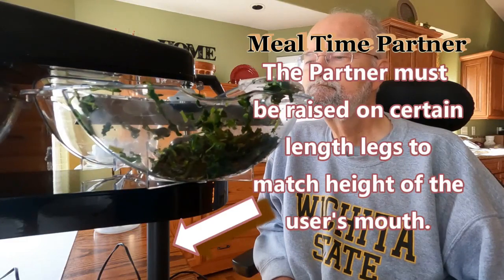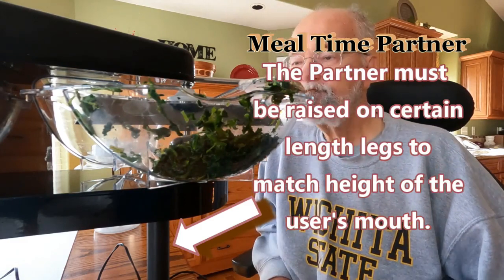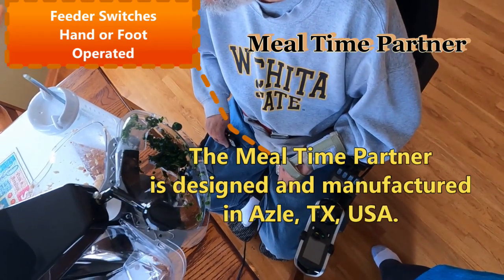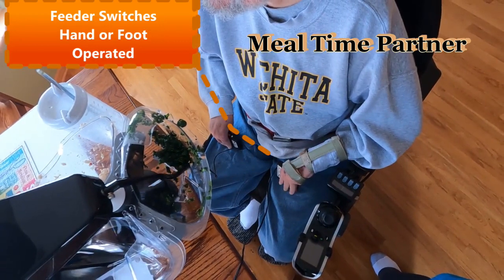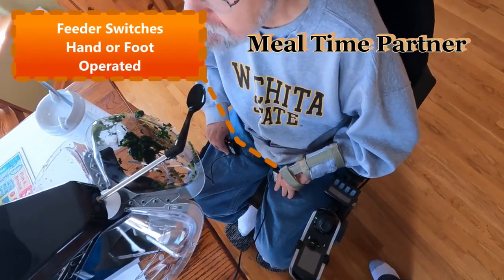Additionally, there's only a little information available for us to read electronically, remembering that Stage 3 IBMers can't handle reading the hard copy manual with so little available use of our arms and hands. The choice of the correct food scraper cover was paramount in getting a spoonful of food to your mouth, and if you put too much food in any of the bowls, the spoon will stall out.